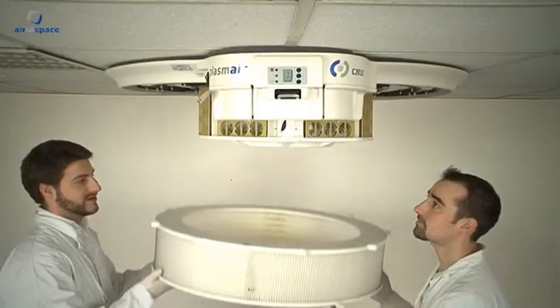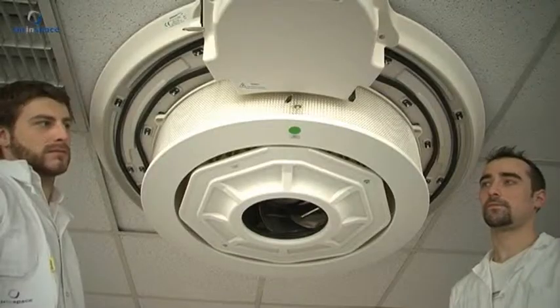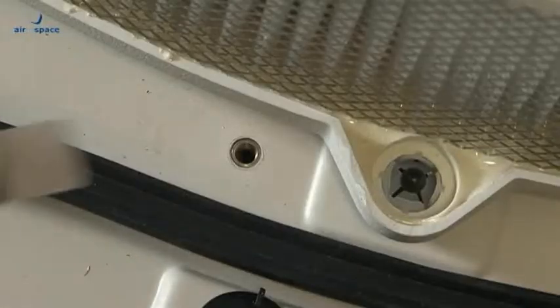Installing the second stage module: Use both hands to lift up the module and clip it onto the base. Beforehand, note how the parts fit together. Use the double socket built into the module's output grid as a reference point.